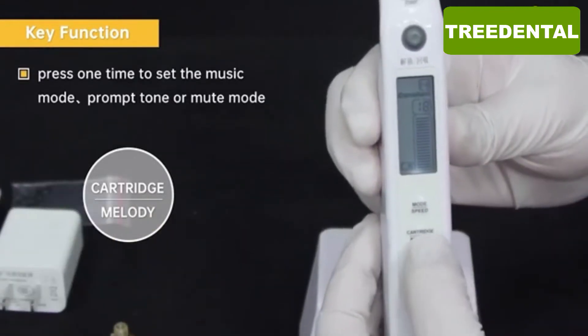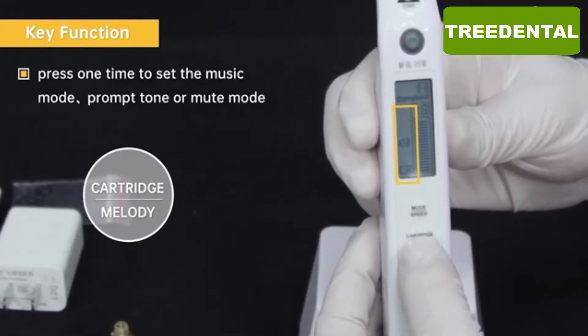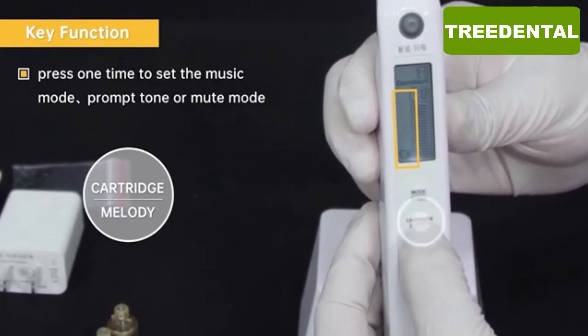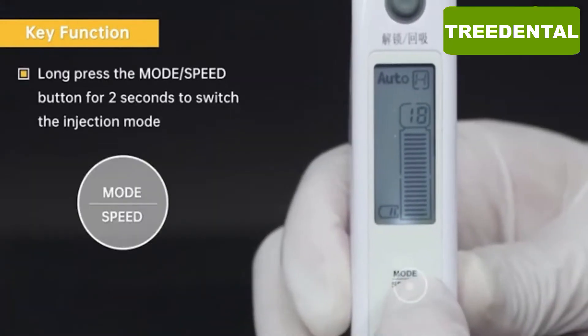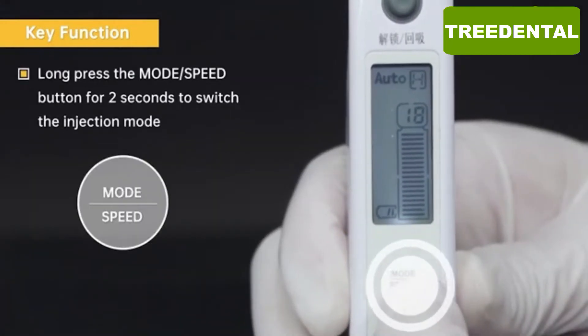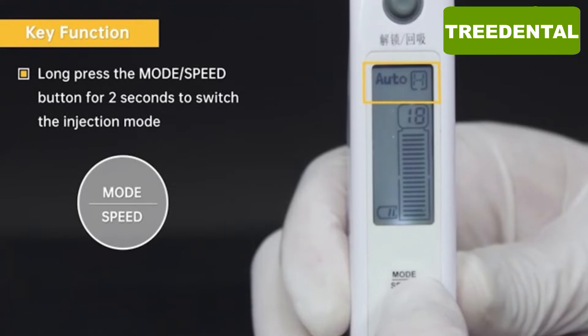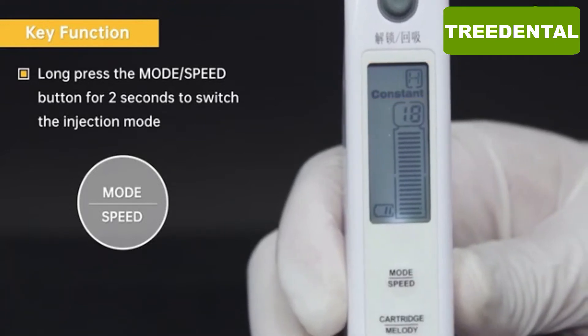Press one time to set the music mode, prompt tone, or mute mode. Long press the mode speed button for 2 seconds to switch the injection mode.